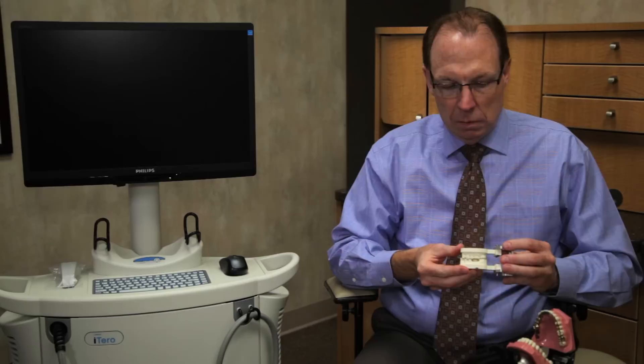When it comes back from the laboratory, it's set up like this on this little hinge with the crown in place. And you can exactly see how that would work to make your crown. The bite fits perfectly. The way it touches the adjacent teeth, it flosses very well, it fits really well, and gives you a crown that's going to look good, feel good, and lasts a lot longer than conventional old impression materials.